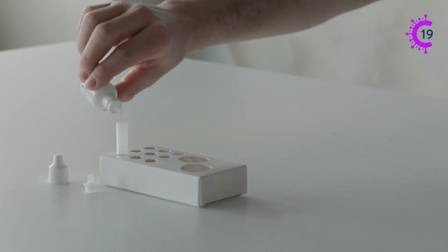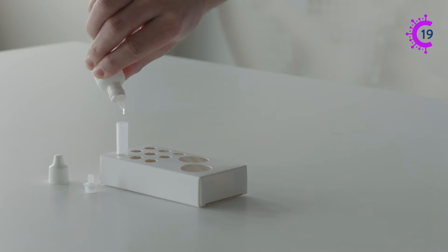Set your collection tube up in the rack and add 10 drops of buffer solution to the tube, taking care not to touch the top of the tube.